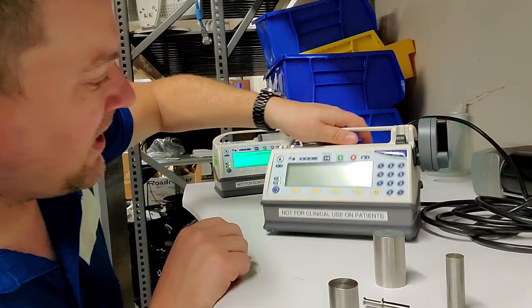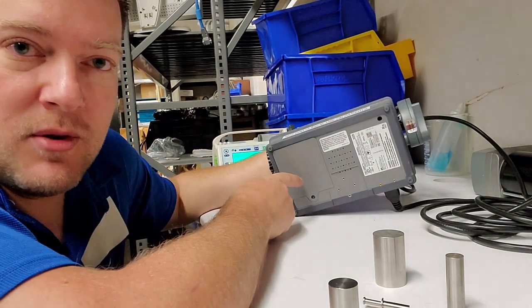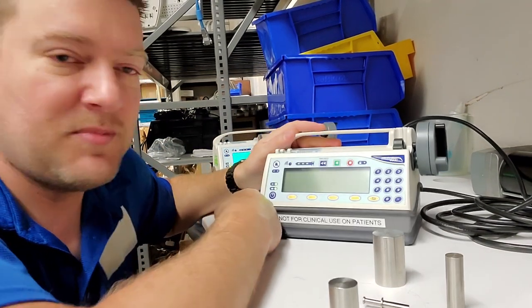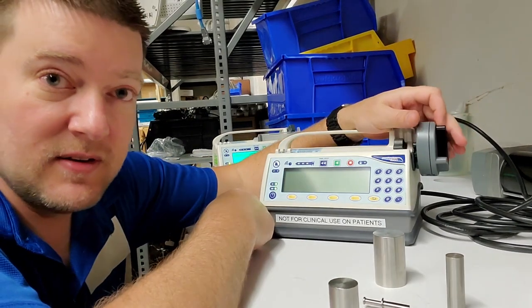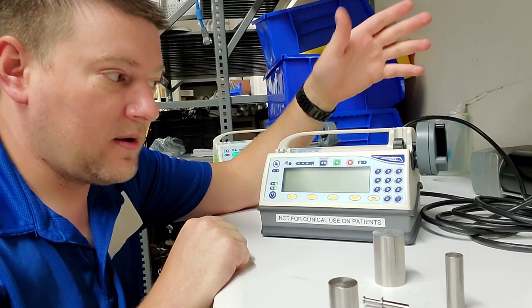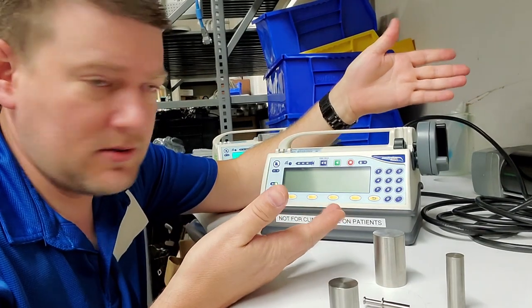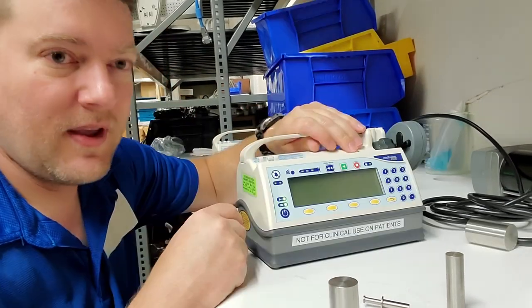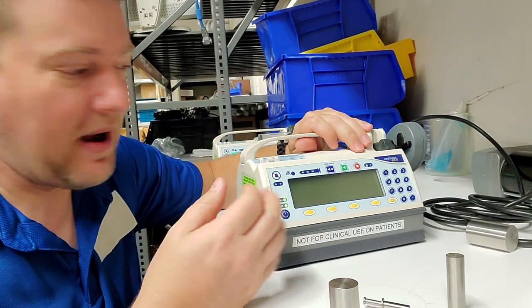These guys have an internal battery because obviously if you're dispersing anesthetic like propofol or giving out pain killer drugs, you don't want this to just shut off because you lose power.